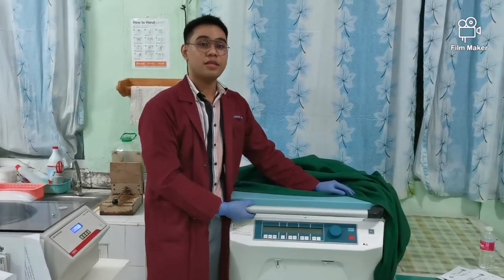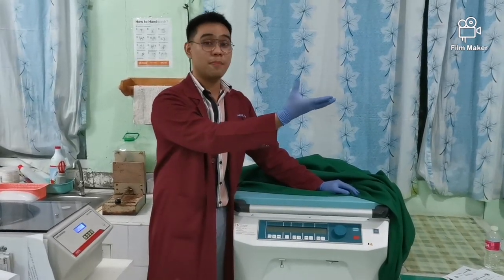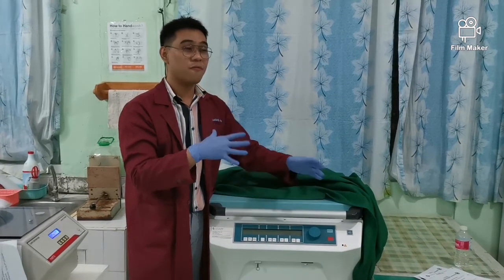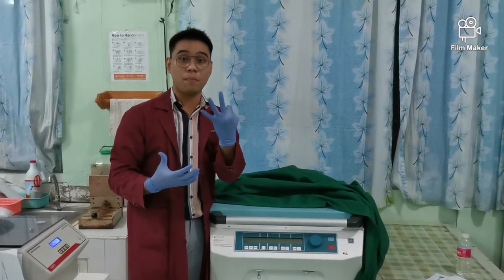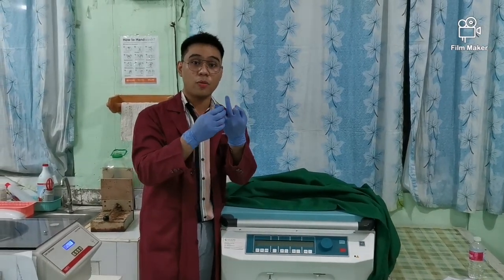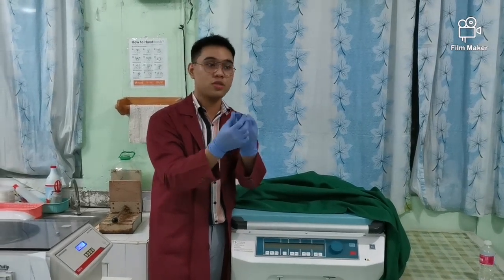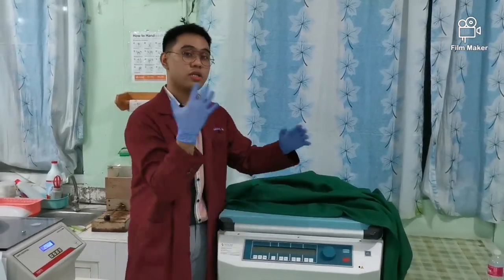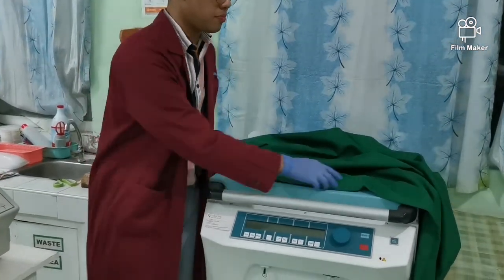We have here the blood component centrifuge. Okay, what I showed earlier of the blood there, when it is freshly collected, you can segregate it into 3 components. Okay, so you can have your packed red blood cells, your platelet concentrate, and your fresh plasma. This is what does that. It centrifuges so that you have different layers.